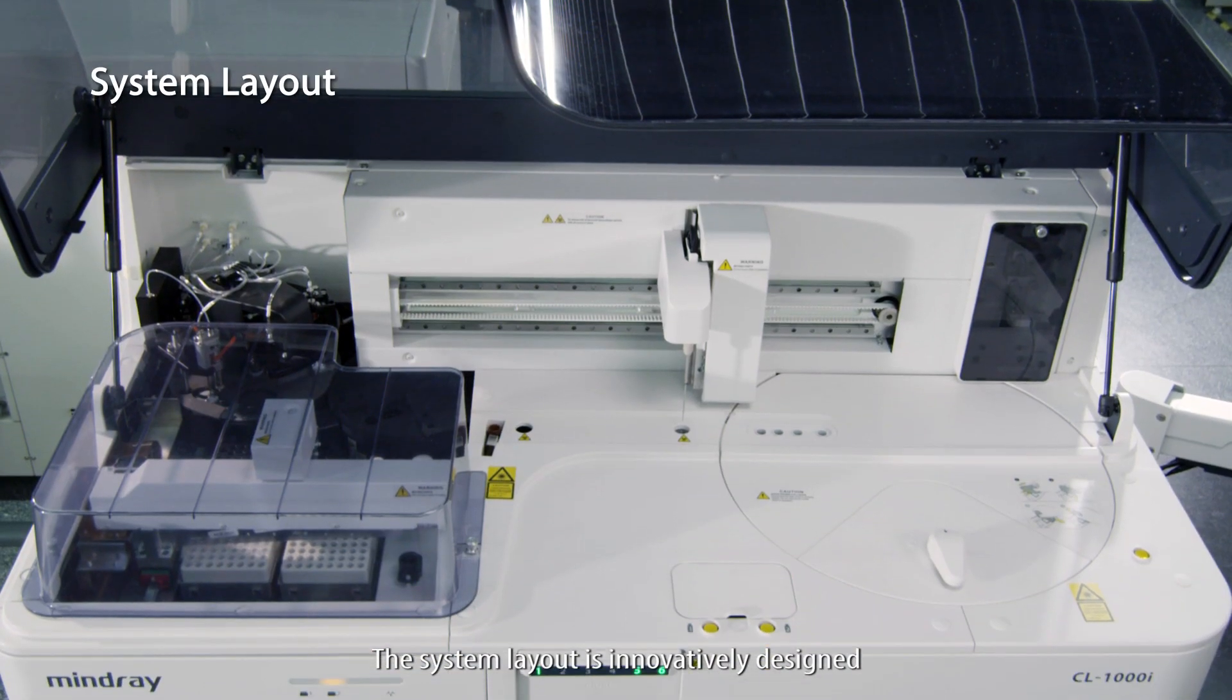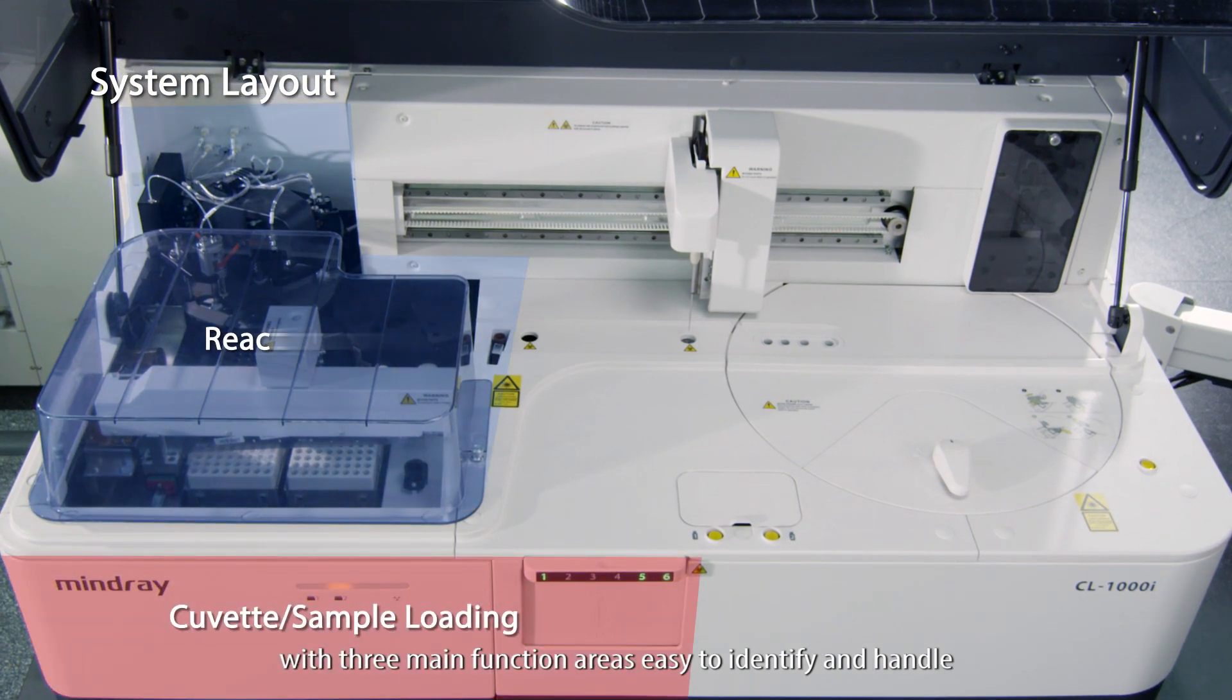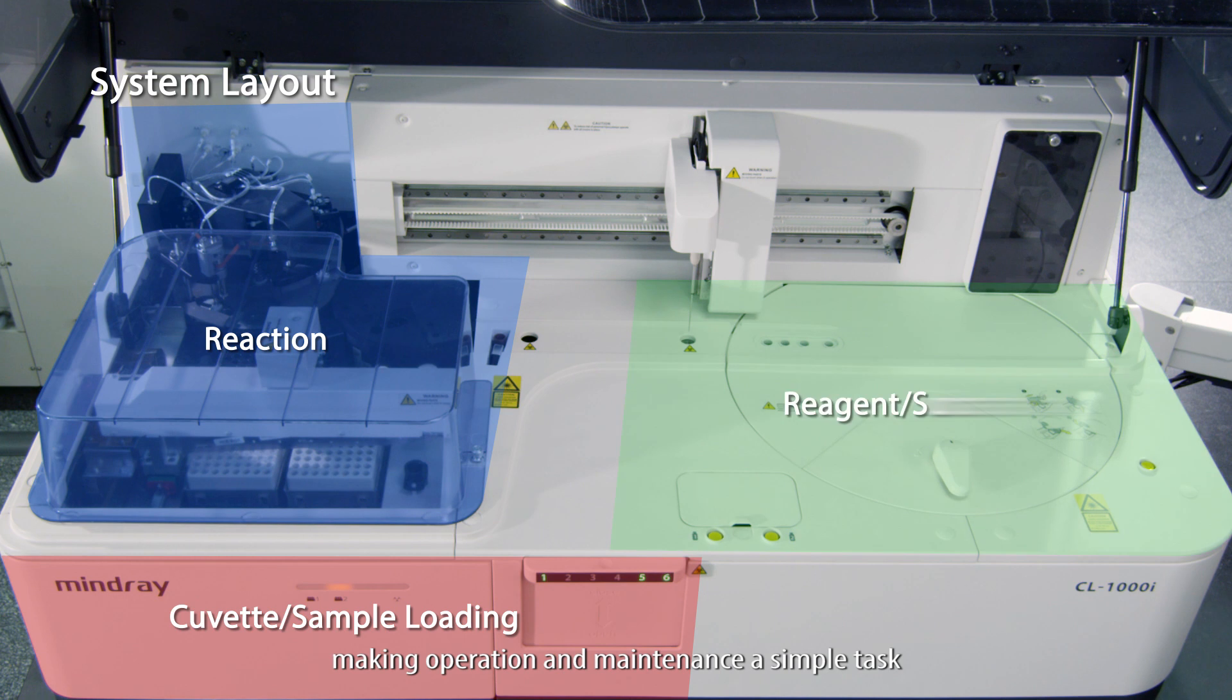The system layout is innovatively designed with three main function areas easy to identify and handle, making operation and maintenance a simple task.